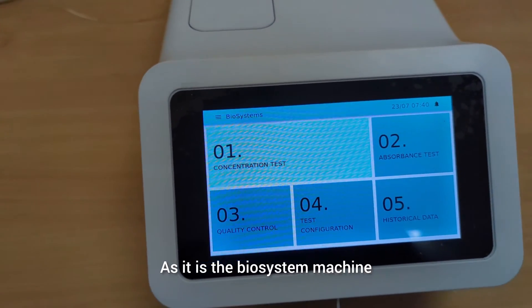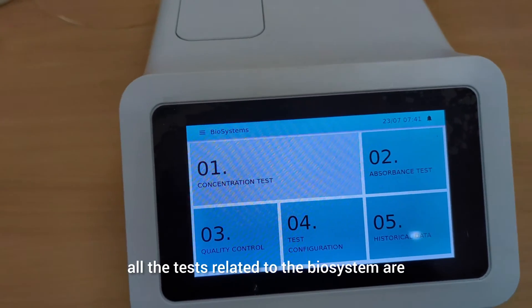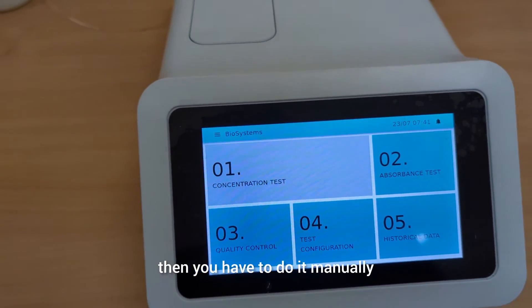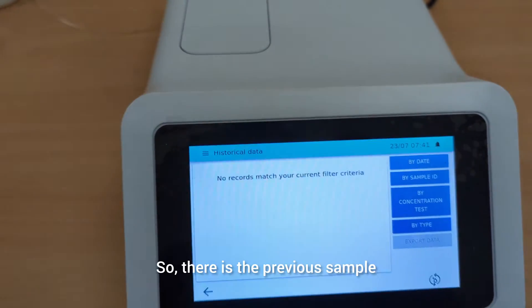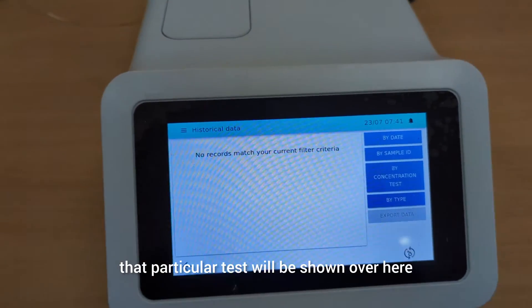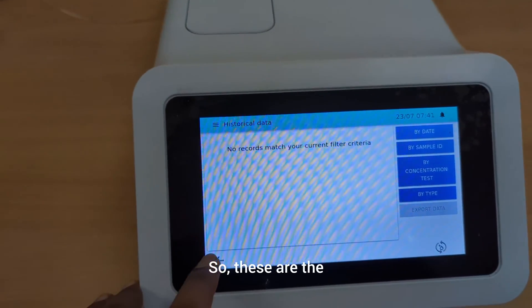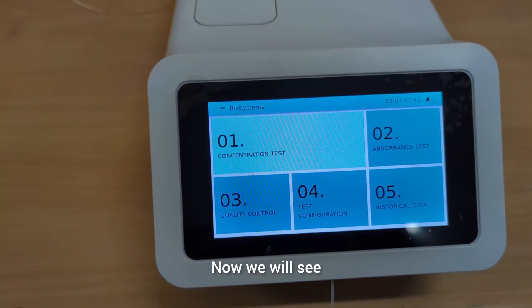This test configuration section is very important for programming a particular test. Since this is a Bio System machine, all tests related to Bio System are pre-configured from the company side. If you want to configure a different company kit, you have to do it manually. In the fifth section, historical data shows previous samples run for a particular test — you can search that data by date, by sample ID, and by concentration.